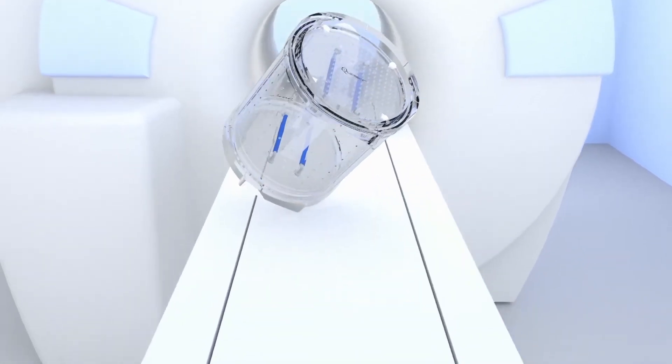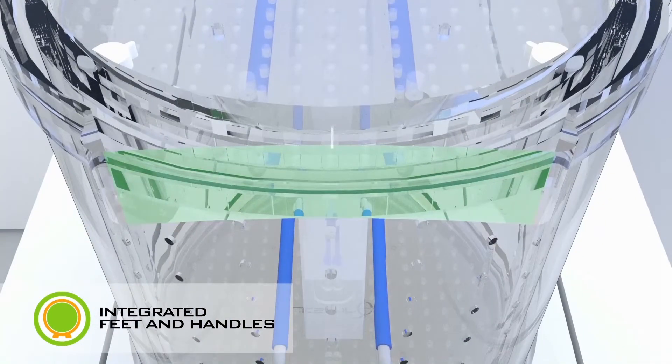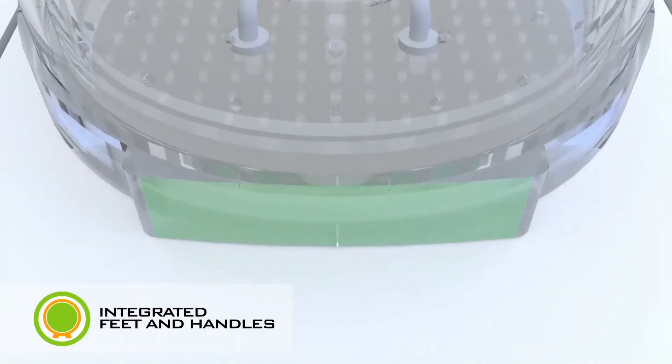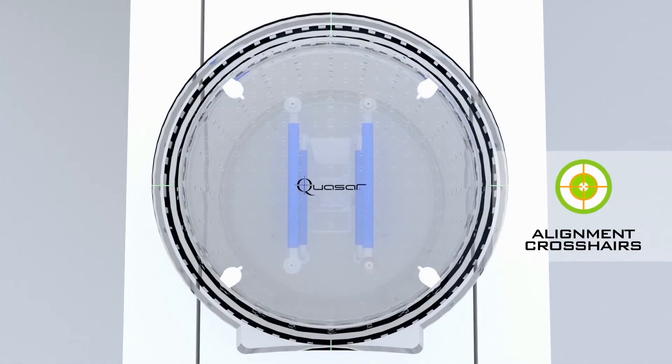It comes with built-in 3-point contact feet for quick setup on uneven surfaces and recessed handles for convenient carrying and easy storage. It is designed to work with the MRI laser positioning system to ensure that there is no roll, pitch, or yaw displacement of the phantom.